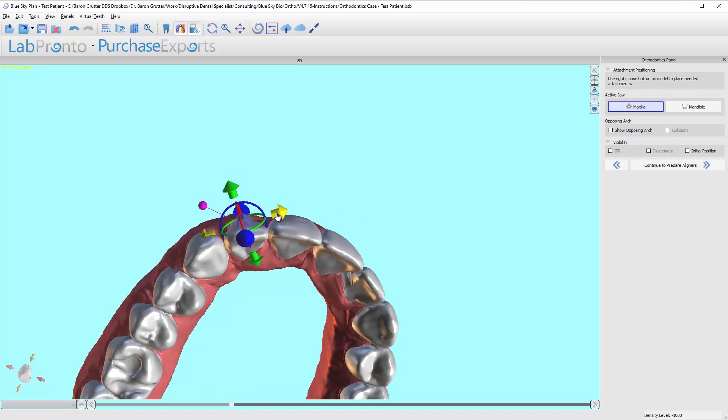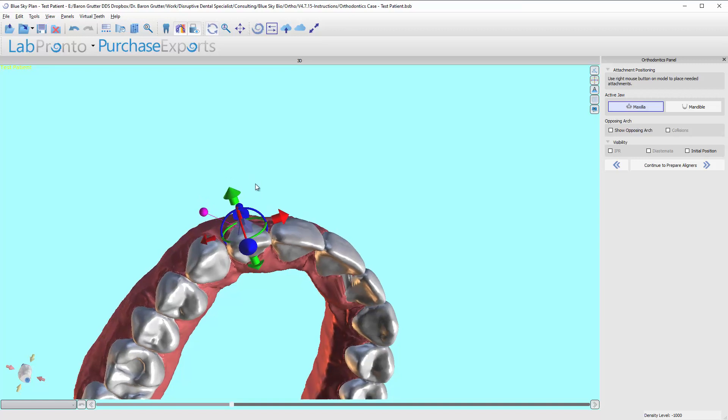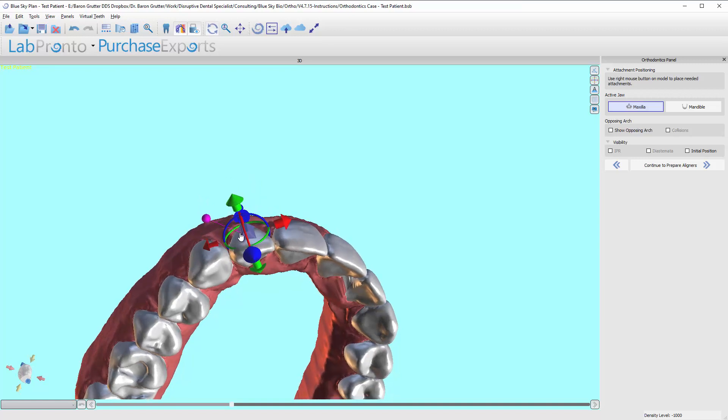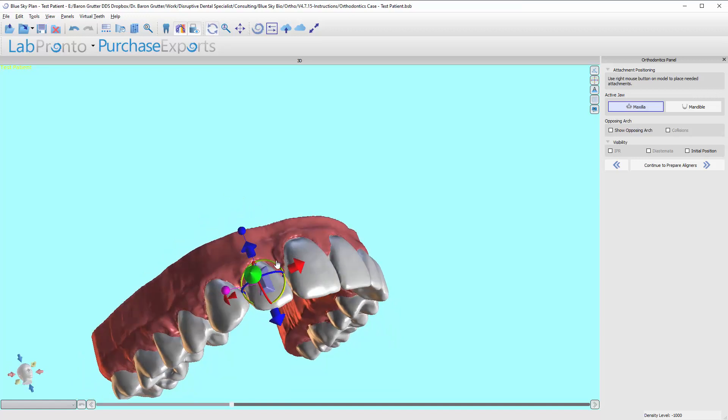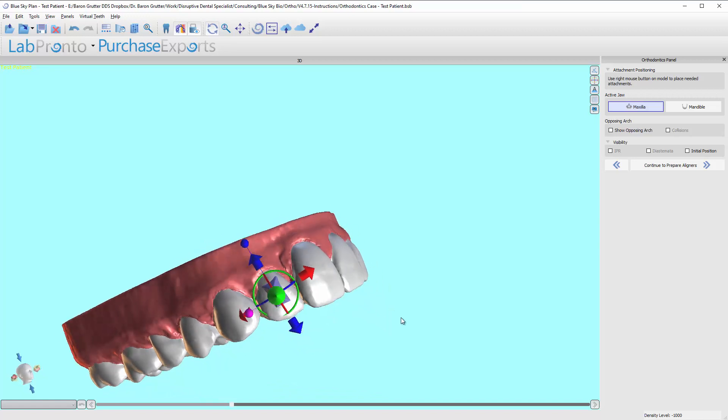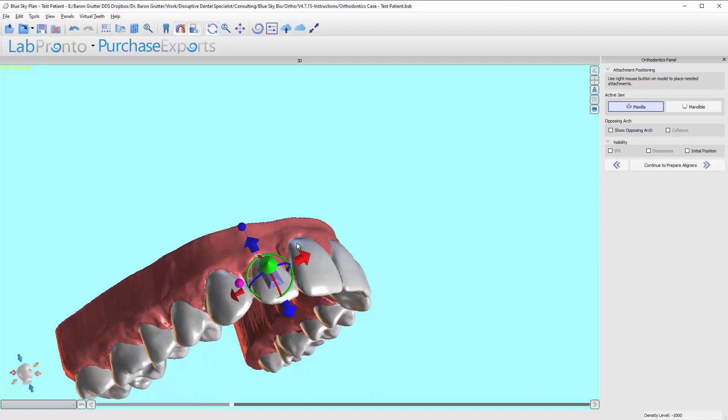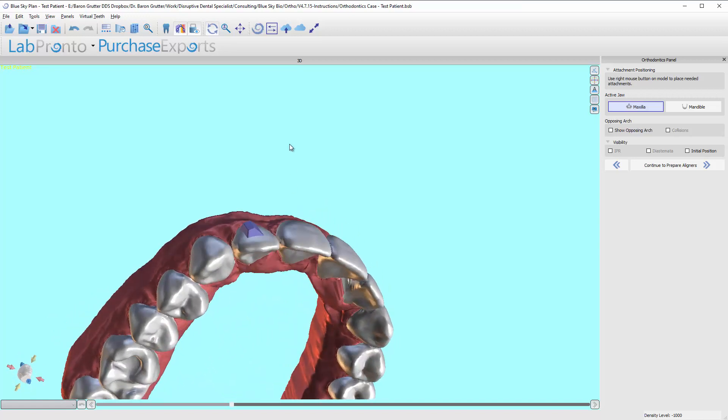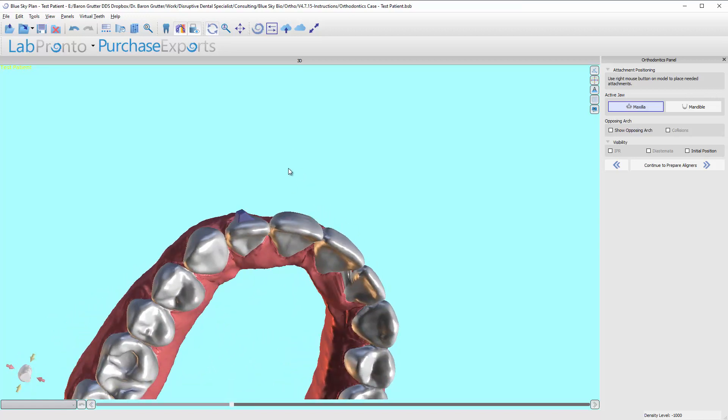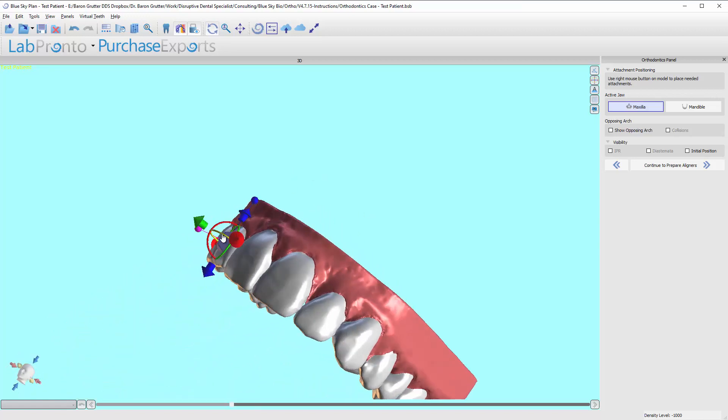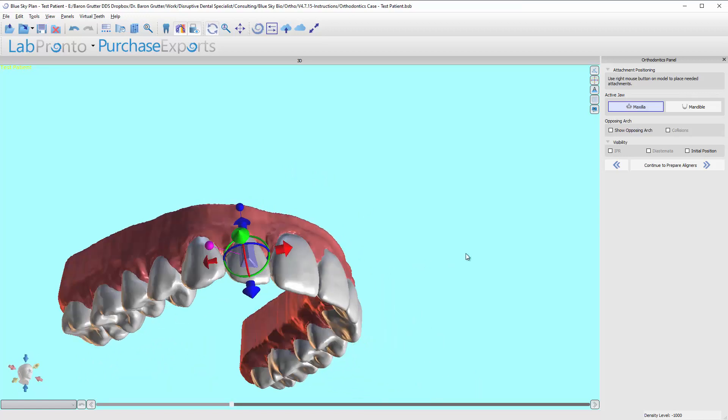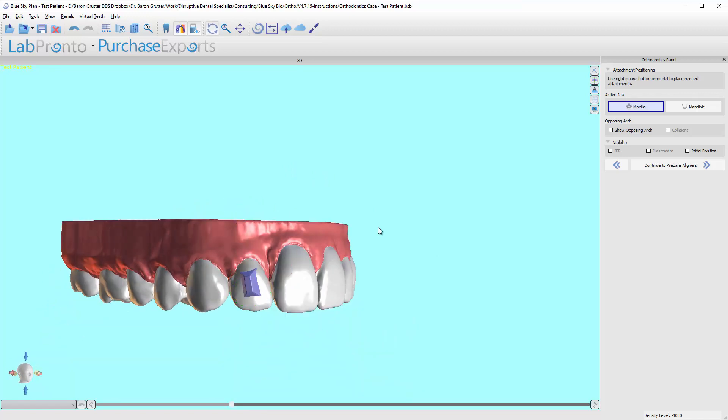Now that's a philosophy type of thing. I like to have this edge to be almost, not quite 90 degrees, not even close, but a more blunt edge for the aligner to grab onto to push. But some people like to do the exact opposite for a more passive movement. So I'll leave that up to you to decide what you think is the most effective.